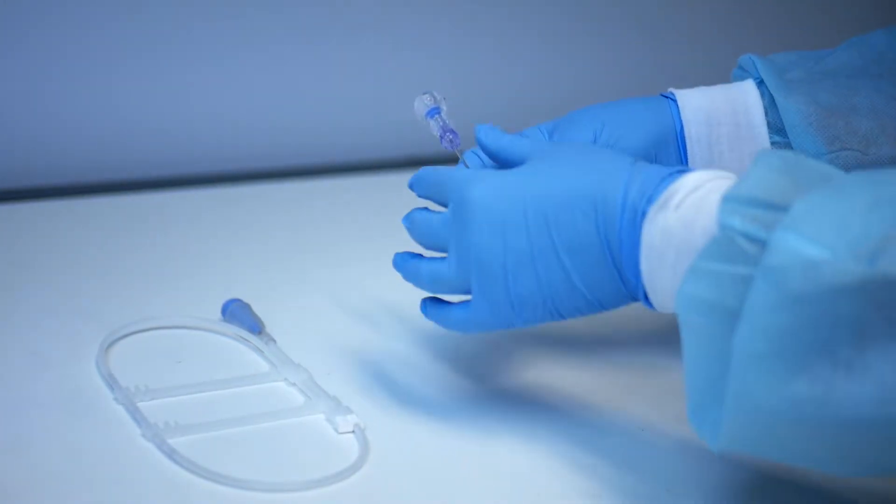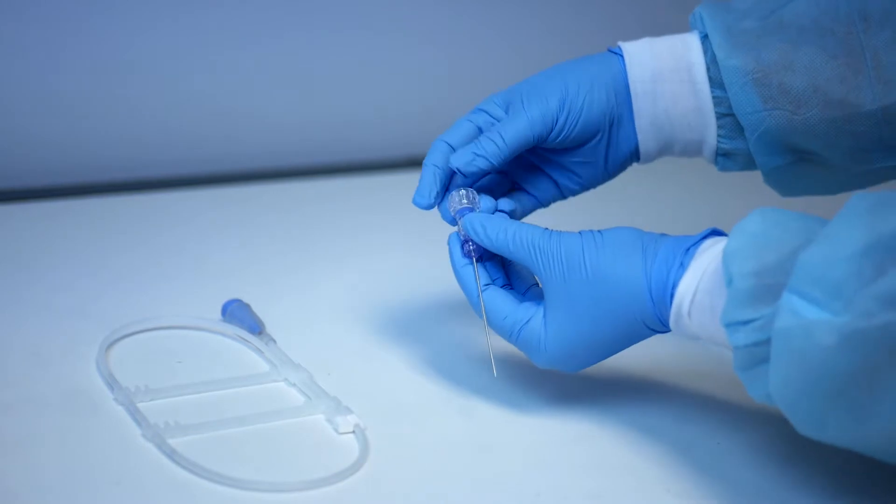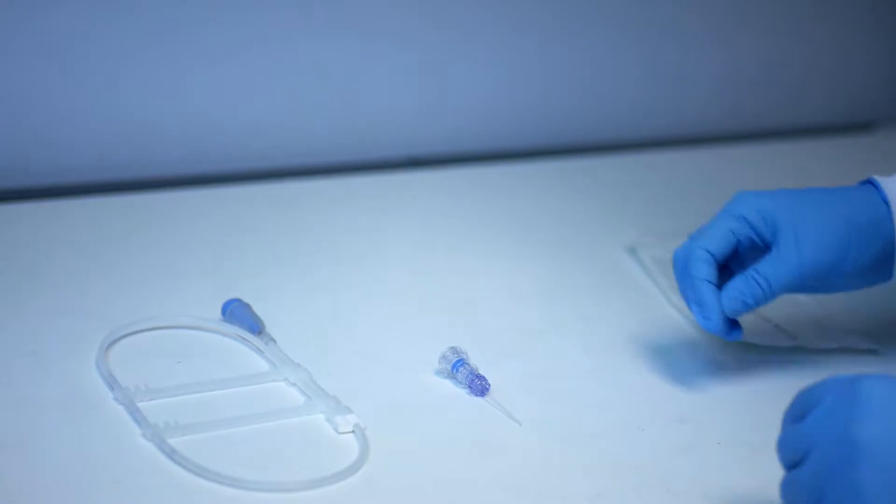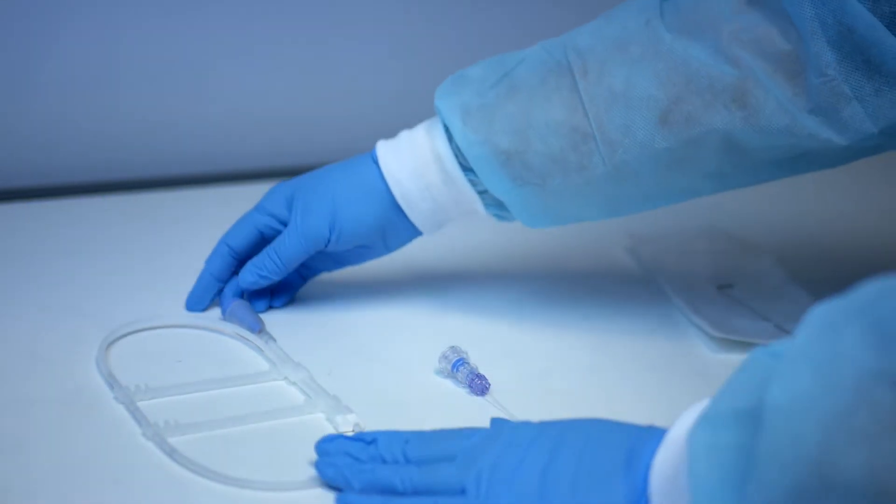Remove the durapiercer from the assembly and set it aside to be used later on. Remove the perfusion probe from its hoop.